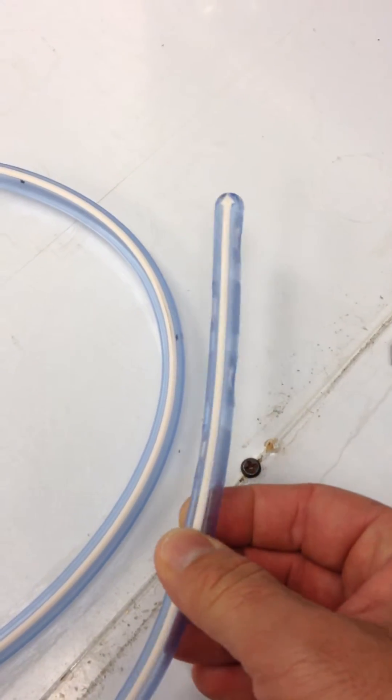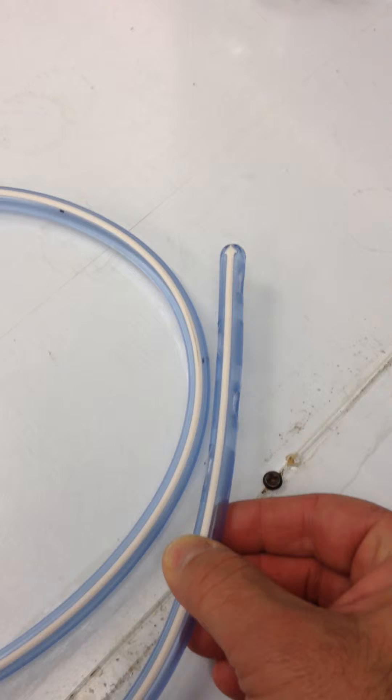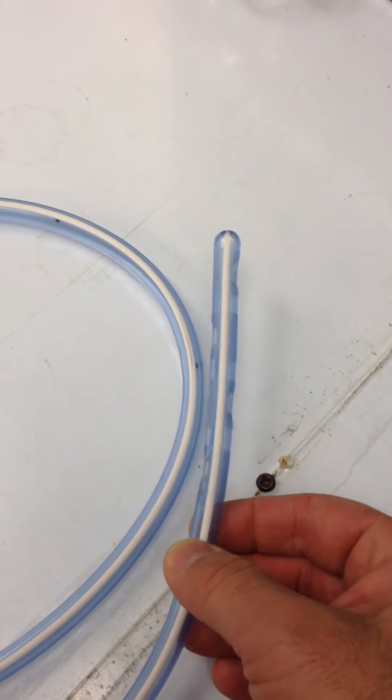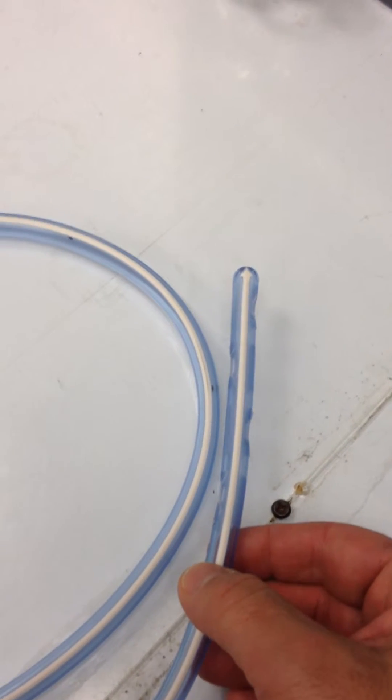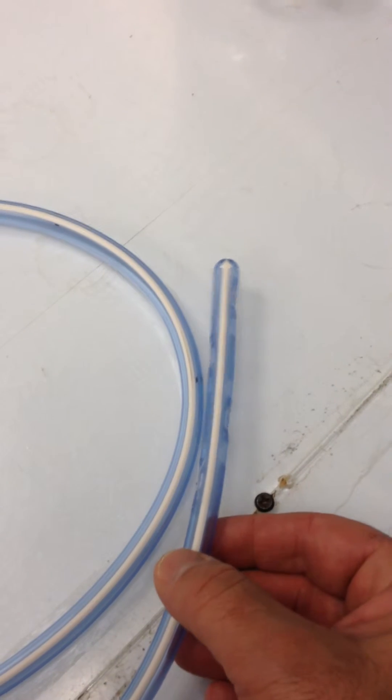Keep in mind, this is at room temperature, this is not physiologic temperatures. If this was in the body, this would be even more pronounced because the body is 37 degrees Celsius. Here in the room, it's only about 22 degrees Celsius.